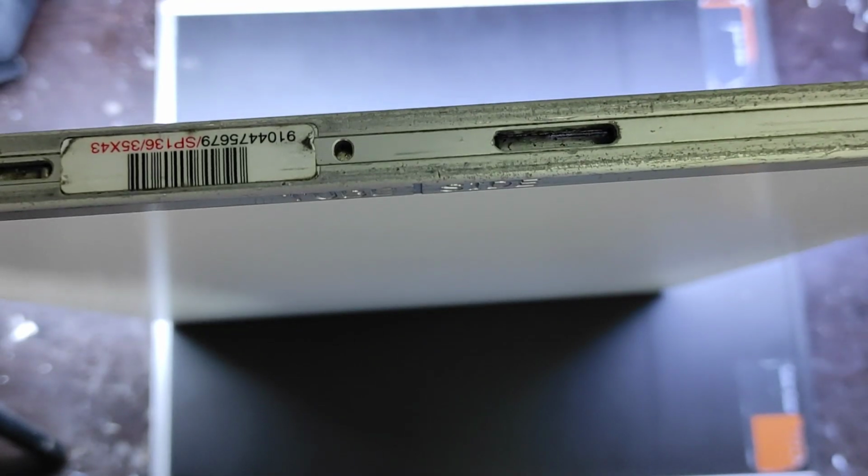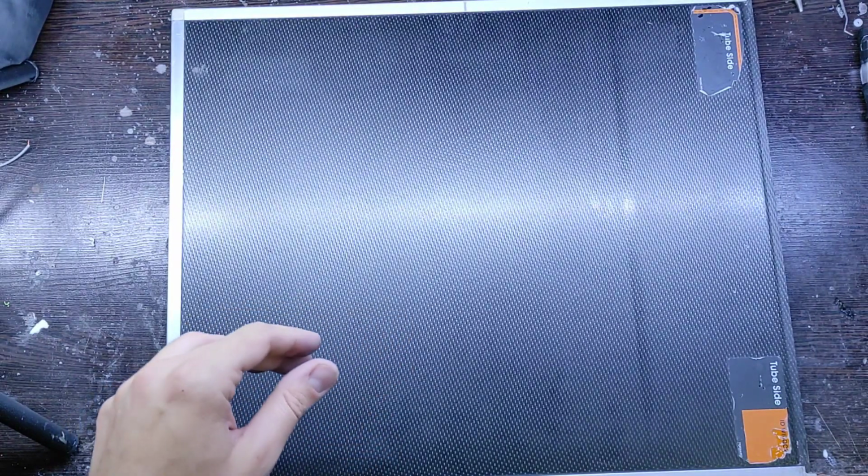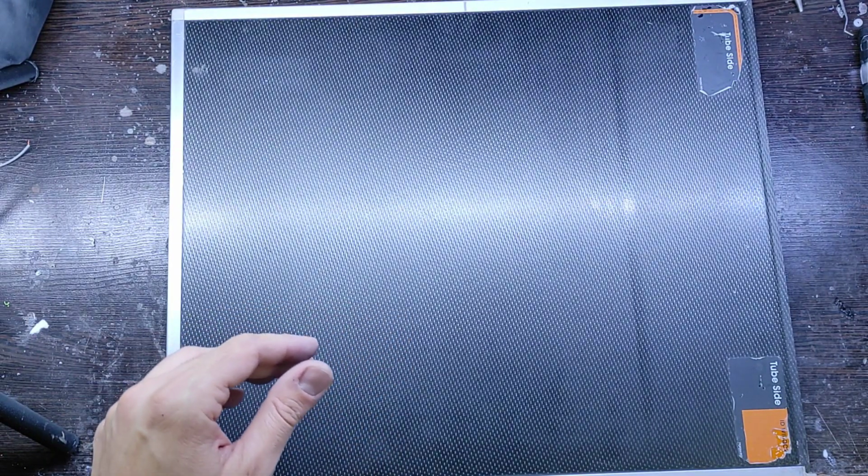This part is the lock of the screen to remain fixed inside the frame, which is opened by the CR system, and in the last step, after erasing the image, it is closed by the device by shining a lot of light on the screen and raising it inside the frame.